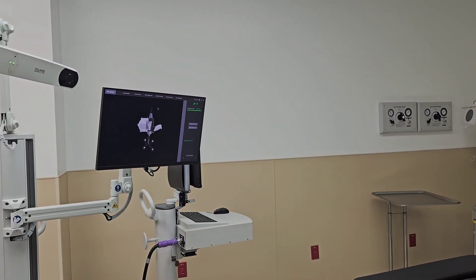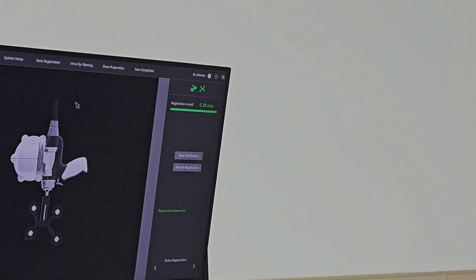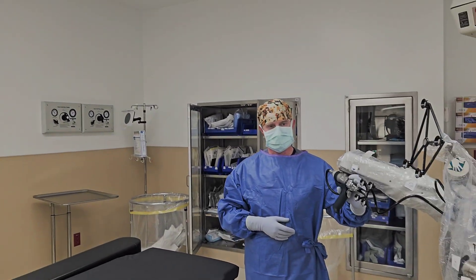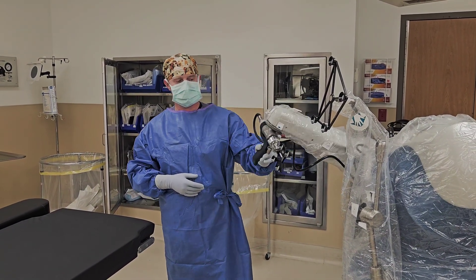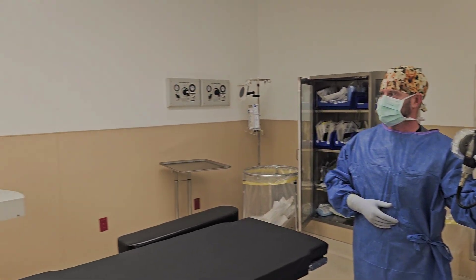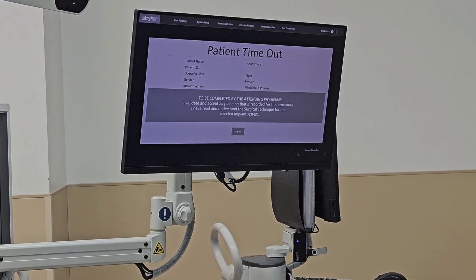As you can see in the right-hand corner, it says 0.28mm — that is the distance we are verifying. Lance does this by pointing the Mako hand piece straight at the ground, pressing the trigger one time, and then going straight toward the ceiling making a 120-degree angle. The robot will automatically go to the patient timeout page, which means it verified successfully and the step was done correctly.